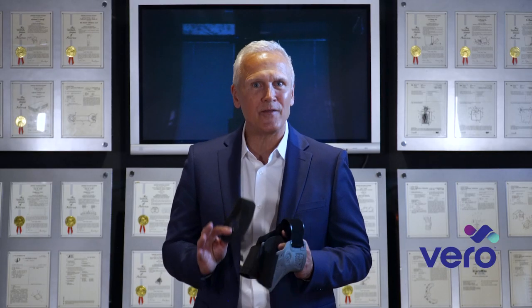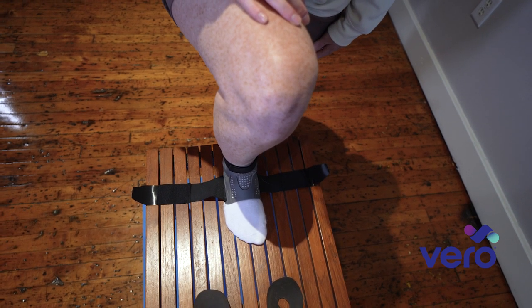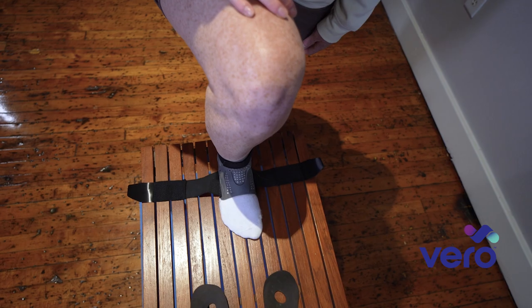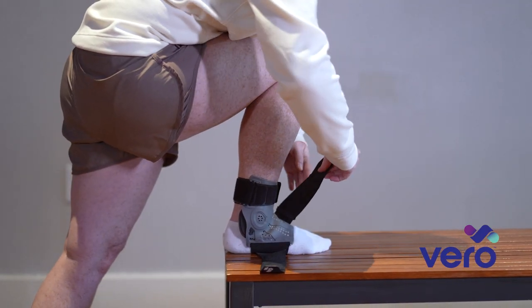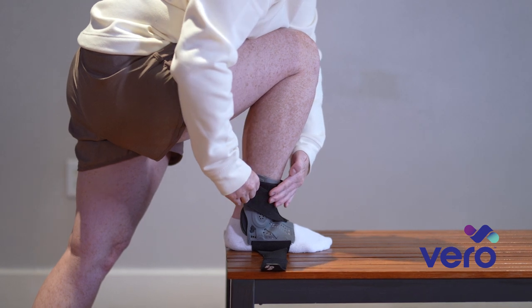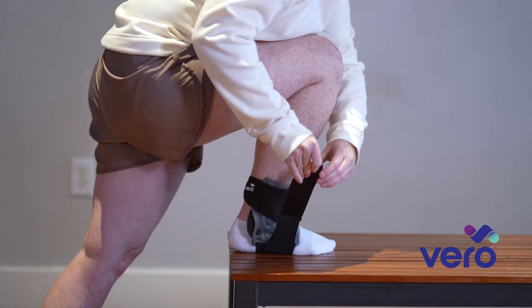It's vitally important to load the brace when applying it. To do that, you place your knee over the toes and secure the top anchor straps like you see here. Finally, take the elastomeric straps, which contour to the ankle anatomy to help ensure joint stability, and cross them over the anchor straps as you see here.